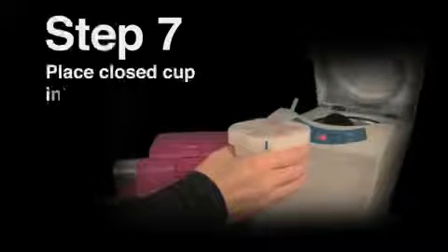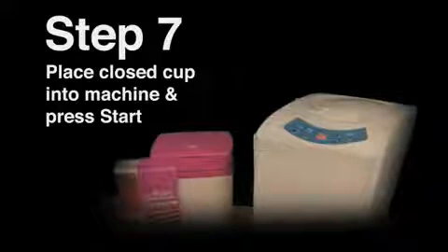Open the lid of the Turbo Max and place the closed cup into the designated slot. Close the lid on machine. Confirm that the correct mixing time is set. Press the start button.